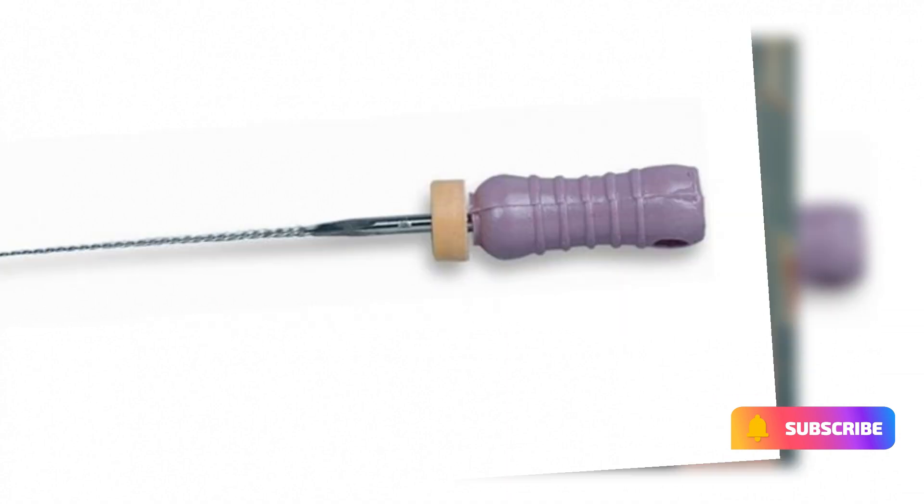Another file available in the market is C-pilot files, which are sometimes difficult to acquire because dealers don't always carry them. If you use C-plus files or C-pilot files, it is very beneficial to clear blocked canals because the tips are very hard, they don't bend, and slowly you can negotiate with these C-plus files.